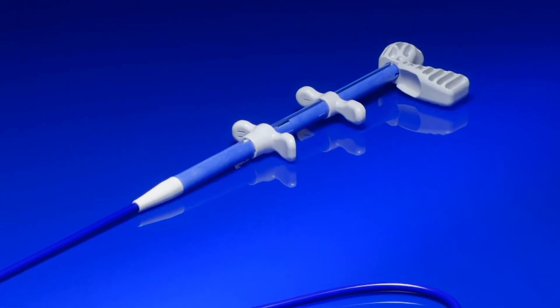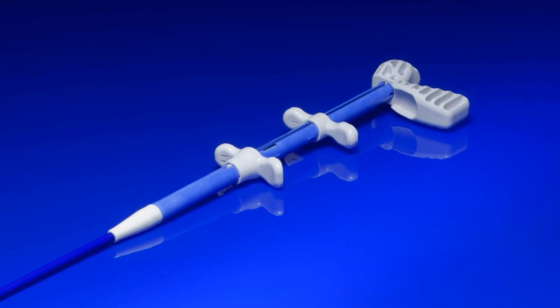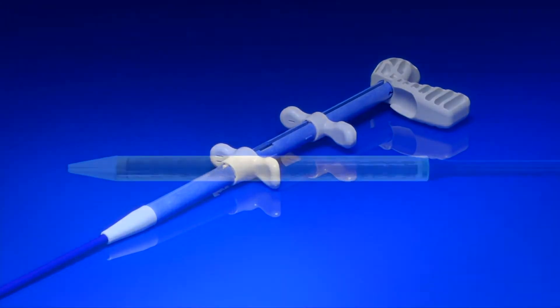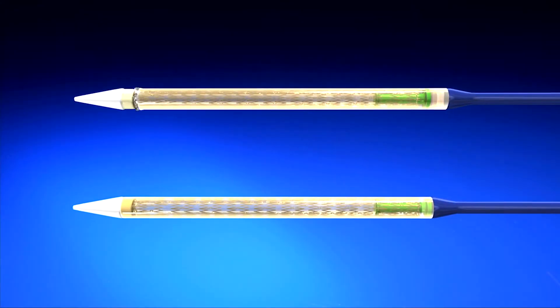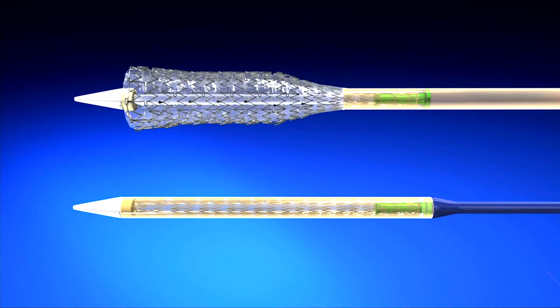The Endomax features a one-handed delivery system that facilitates accurate stent placement. Its preloaded self-expanding stent is laser-cut from a single nitinol tube.